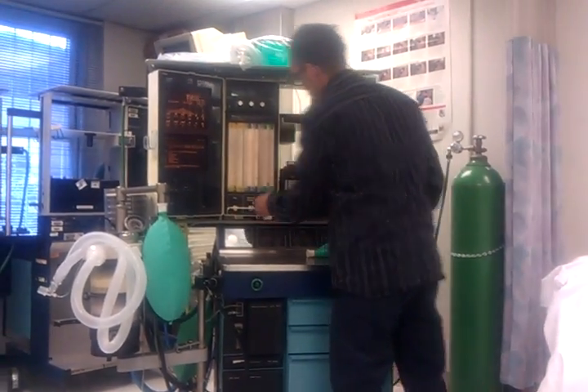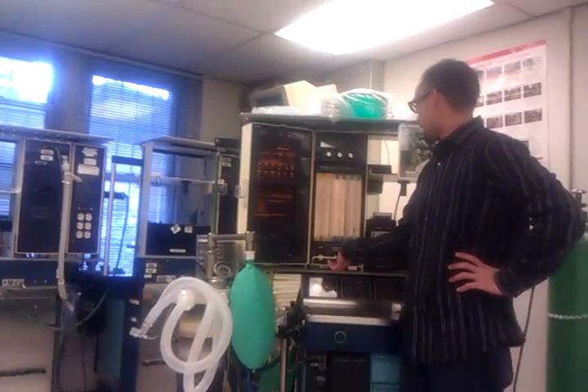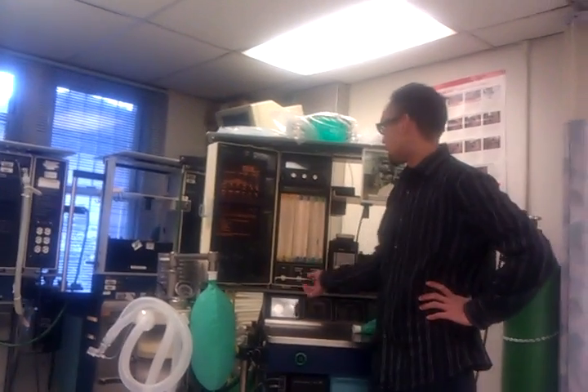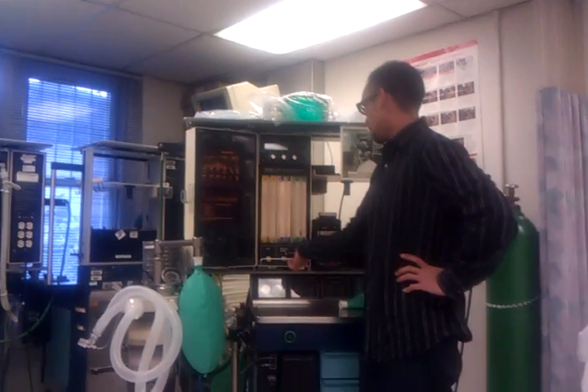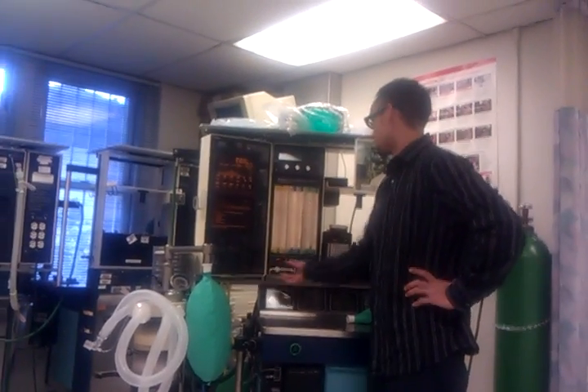Next I'm going to attempt to make a hypoxic mixture with only nitrous — which I can't, because my oxygen goes up whenever I go up on my nitrous. The ratio is about 3 to 1, and there's no alarm set off for the hypoxic mixture. So that's good.